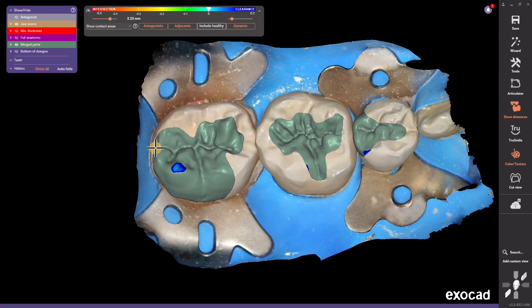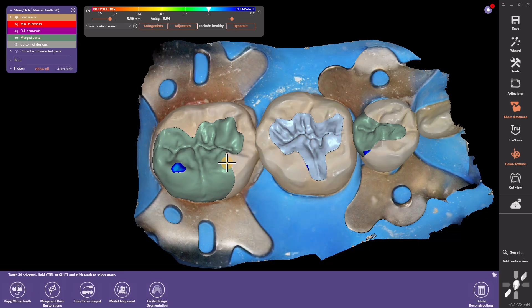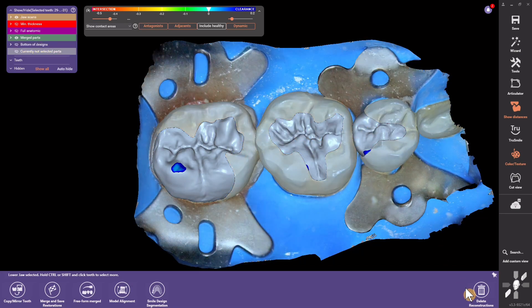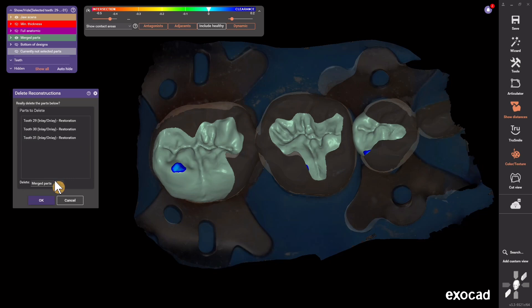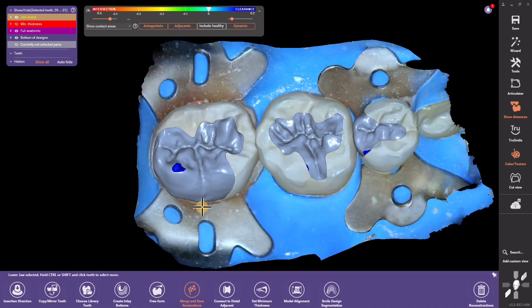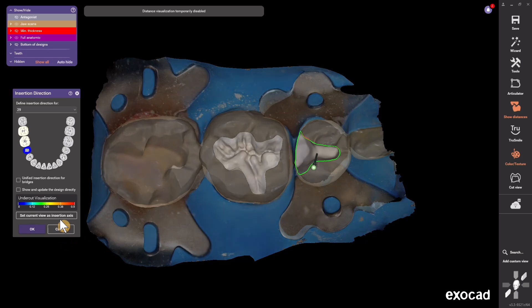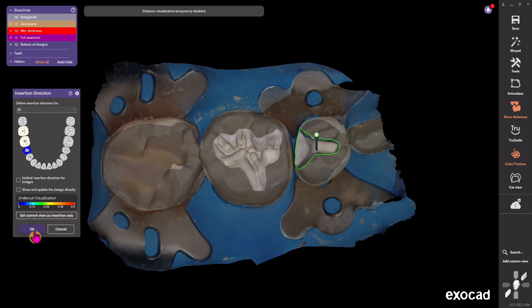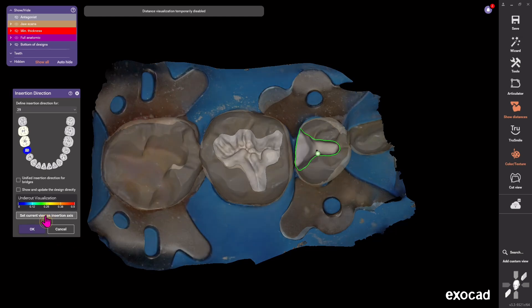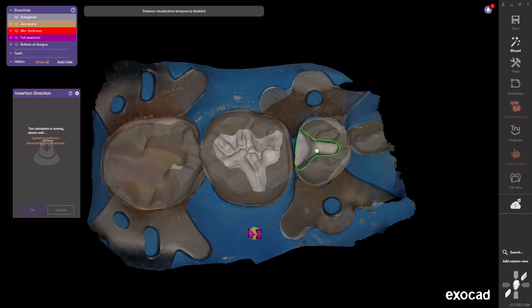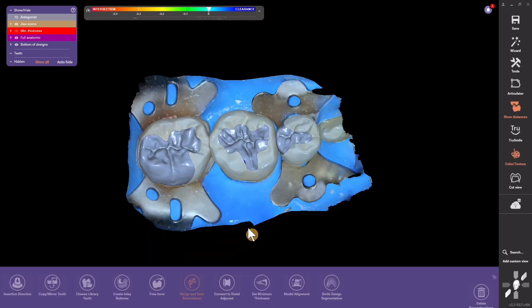The real way to make profound changes after you finish a design is to delete the final design. To do that, highlight each restoration — hold Shift to highlight them all — then go to the trash can and delete the merged or final part. You'll notice a lot of other steps pop up, like path of insertion. You can click Path of Insertion, update that, and what's cool is when you backtrack in Expert Mode like this, it keeps all your free-forming changes and just modifies that one step. This is pretty powerful.